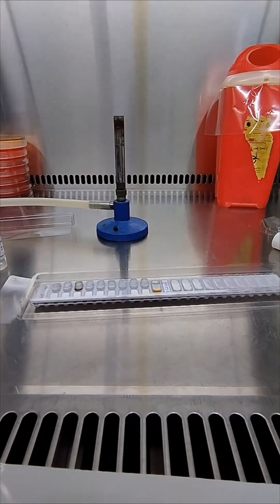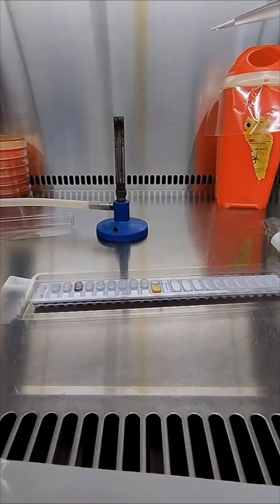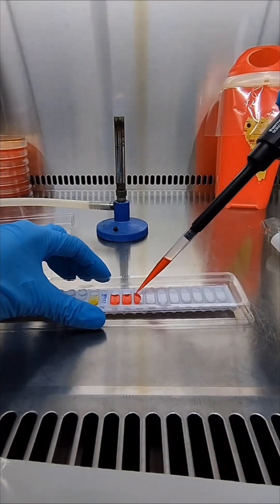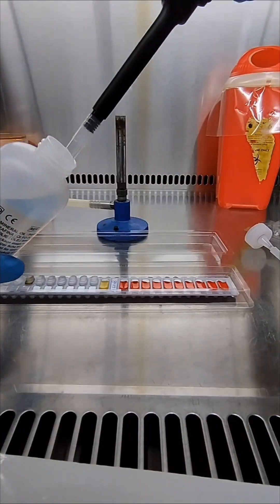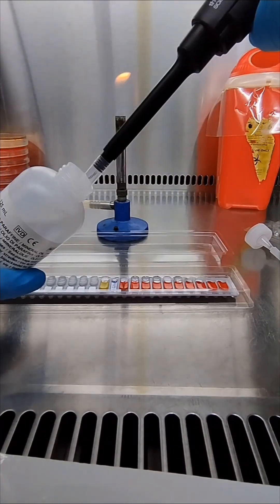After that, around 500 microliters of inoculum will be added to the GP medium and fill only the tubes from RIB to GLYG and create anaerobic condition with the help of mineral oil in these last tubes.